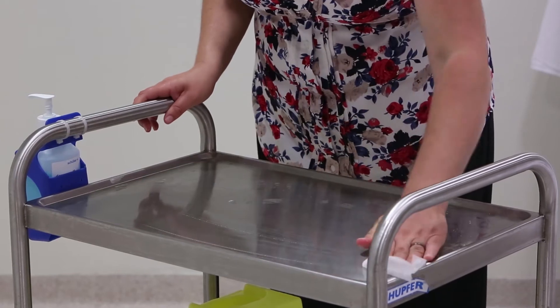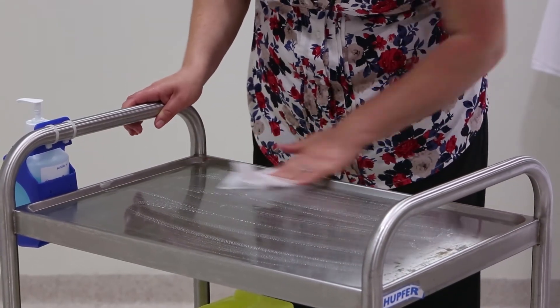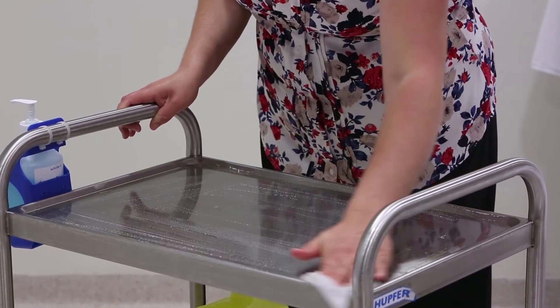Using a clinical wipe, clean the surface on which you will be laying out the equipment and allow it to dry. It is important to use a stable surface and not the patient's bed.